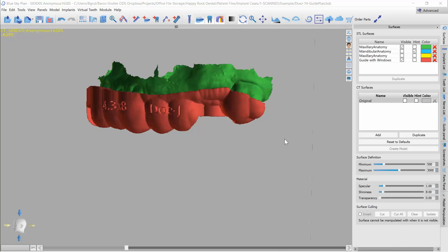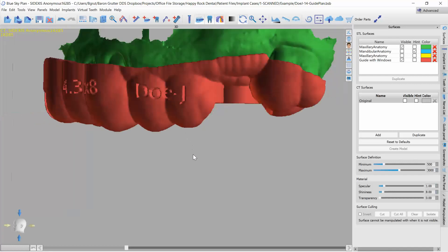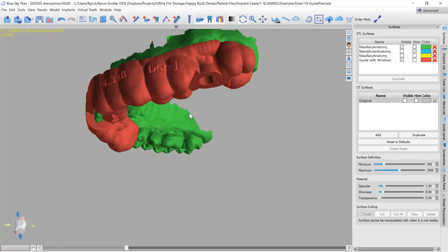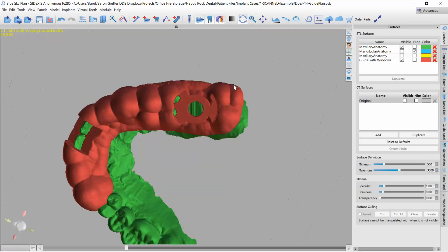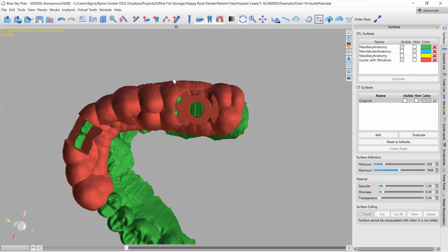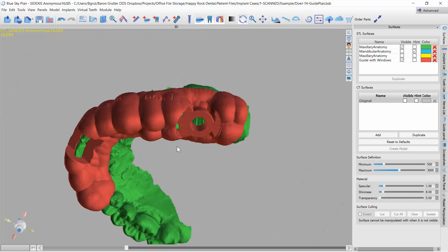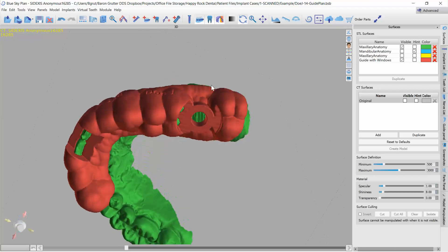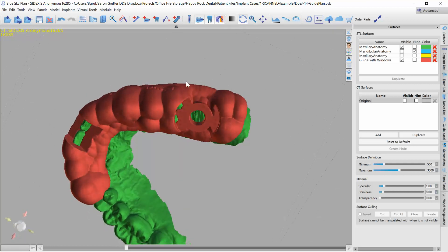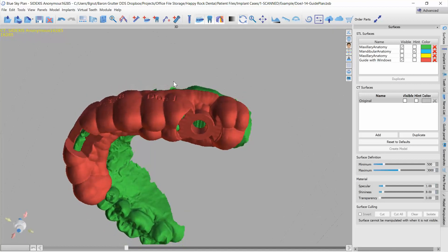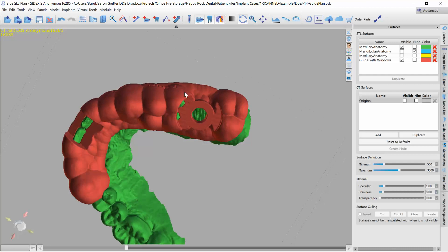I got a question today about how to make a surgical guide with a hole in the side of it, essentially for a case where you have a patient with a limited opening where you want to swing the drill in from the side. There's different times you might want to do this.